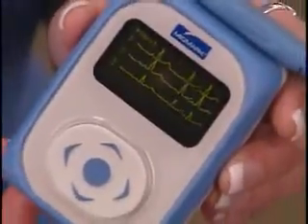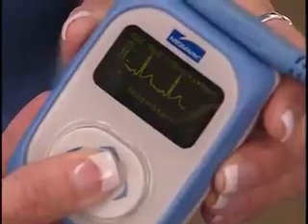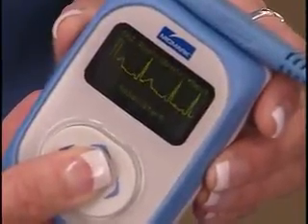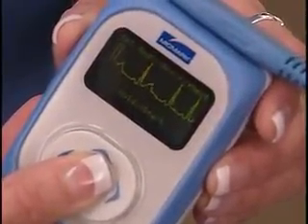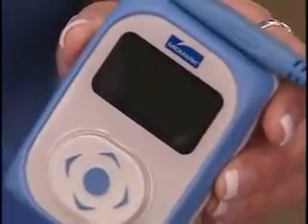The recording mode can be started immediately by pressing and holding the Event button, which is the center button, for 5 seconds, or until the EKG display turns off. The IQholter recorder will automatically enter the recording start time and date.